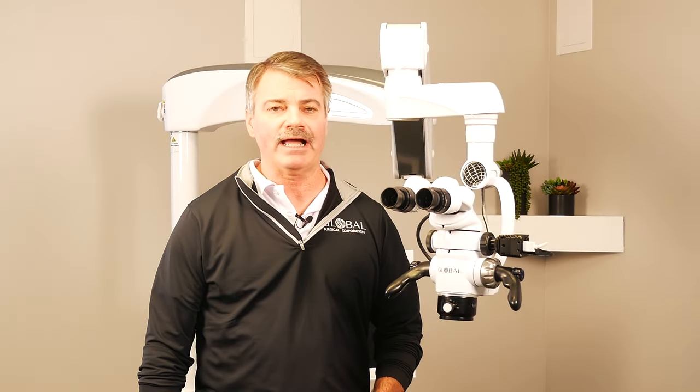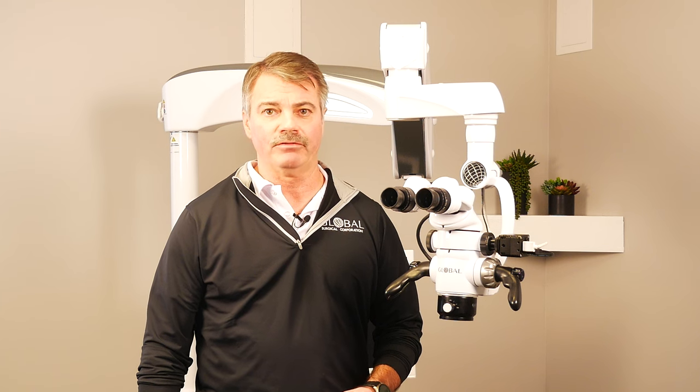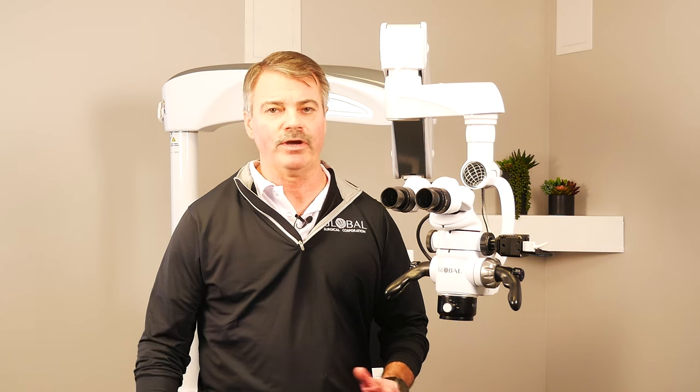Using the microscope allows you to sit in an upright, ergonomic position, allowing you to practice longer and healthier than what you normally would using loops or the way you're practicing today.